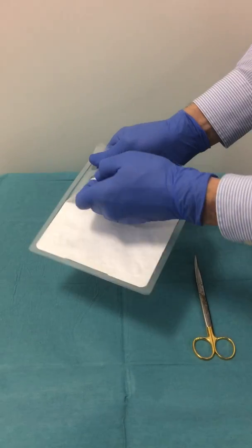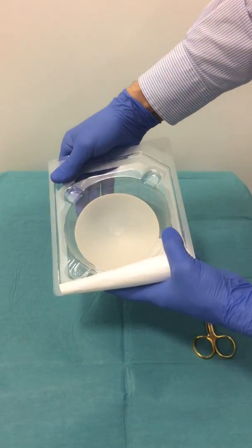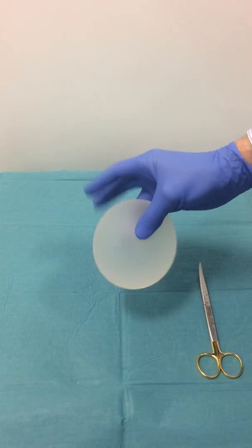And then the implant on the inside sits like this. We can take that off. And here you can see an implant.